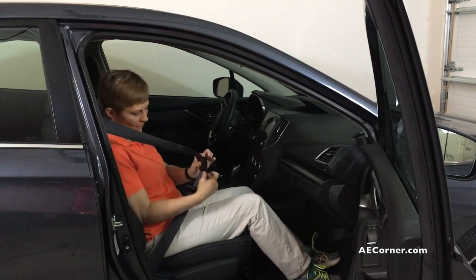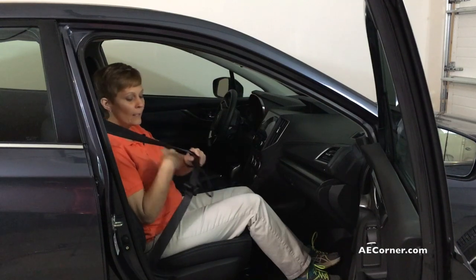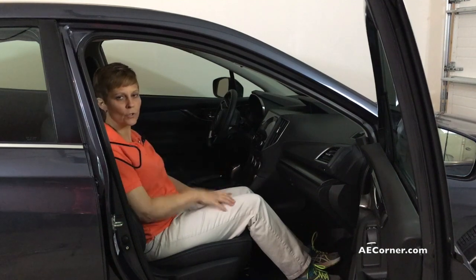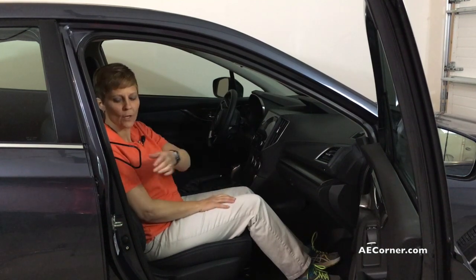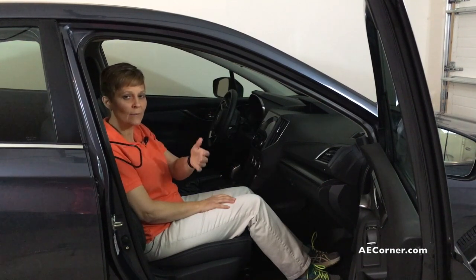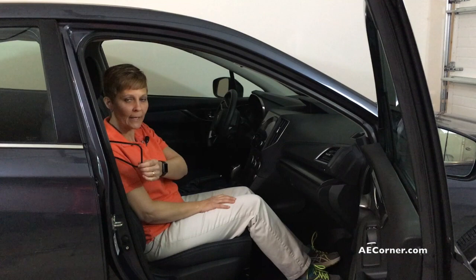So that part is not the most convenient as far as I'm concerned, but it is very handy if you can't really reach back behind you. So again, that's a seat belt grabber handle — that's how it was labeled on the internet. If you put in seat belt assist, seat belt grabbing, anything like that, you're going to find an item like this.